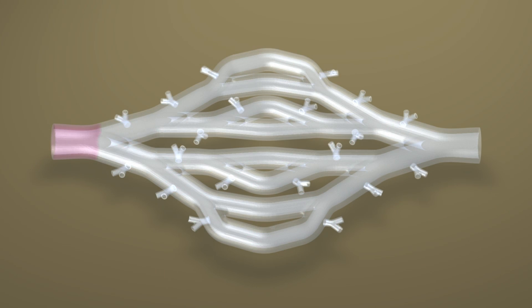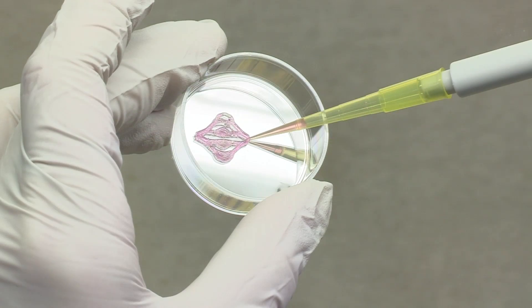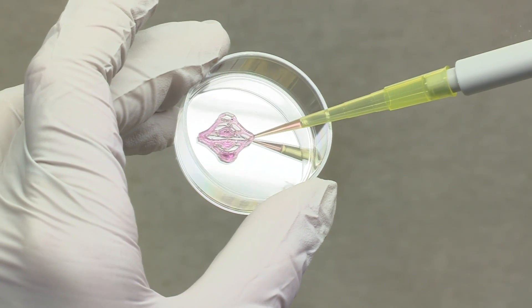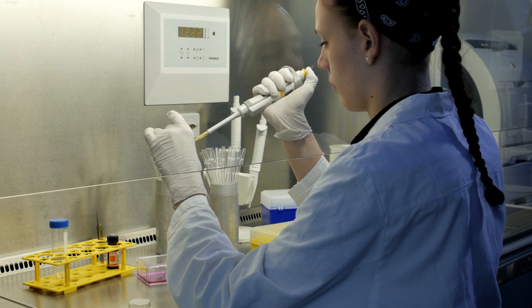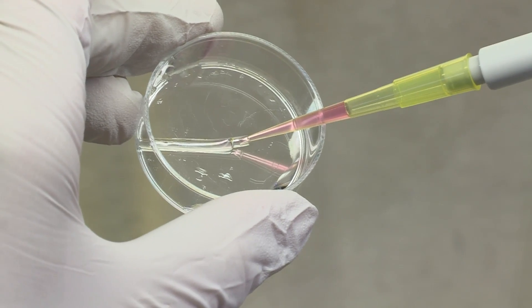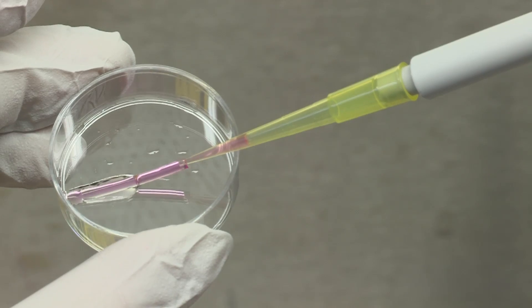If plastic tubes with their artificial surface are used instead of biopolymers, the surface has to be coated with biological molecules first. Biological surface coating and seeding endothelial cells into the tubes have been developed and can now be applied to various sorts of materials and geometries.